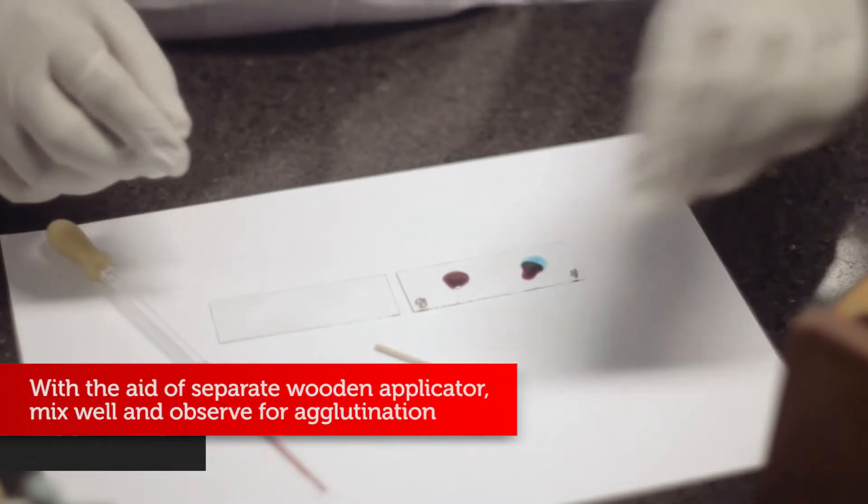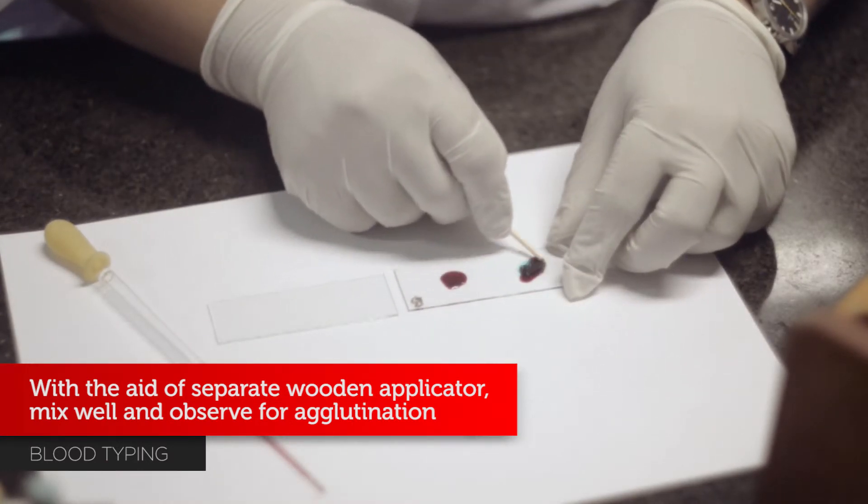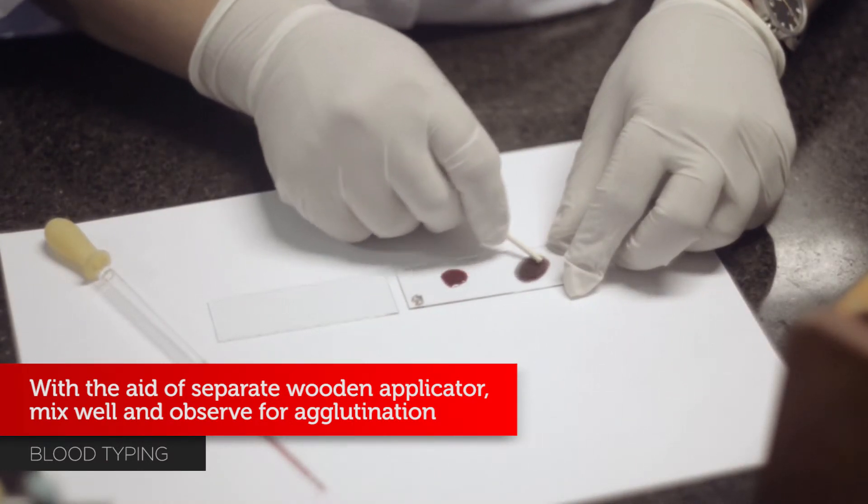With the aid of separate wooden applicator, mix well and observe for agglutination.